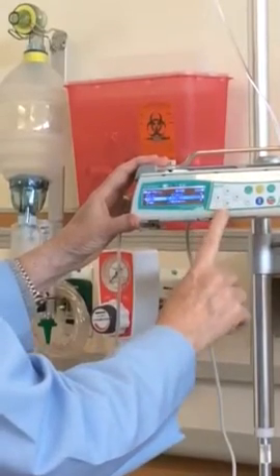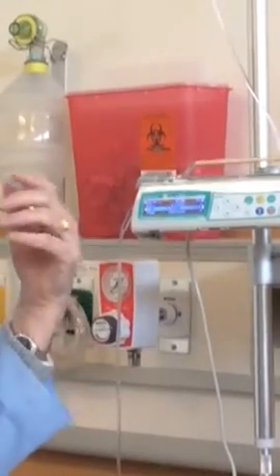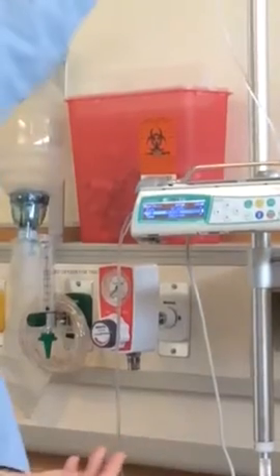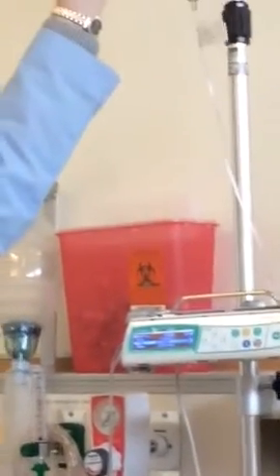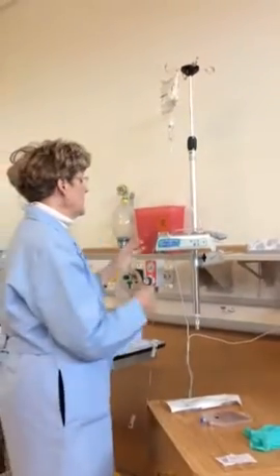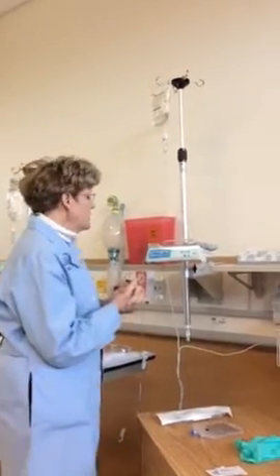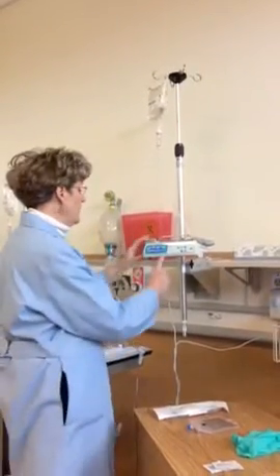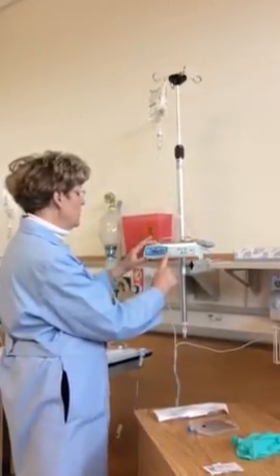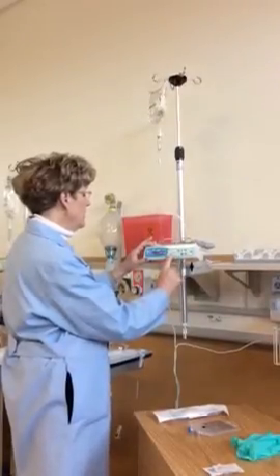And then I'm going to set my volume to be infused. I don't want this running forever. Remember, this is an isotonic solution. It's not the same thing as drinking water. It's not hypotonic, so we don't want this running endlessly. I might set it up at 42 an hour. Let's set it at 40. It's under an hour, and hopefully I get in the room before then to get this taken down. So I'm going to go over here, drop my volume to be infused down to 40.